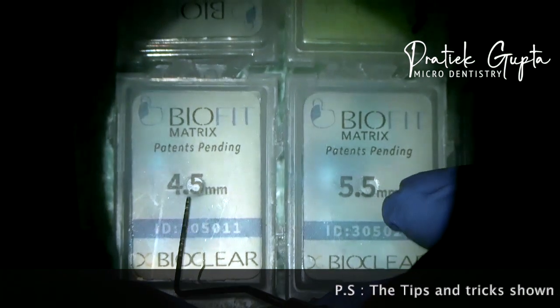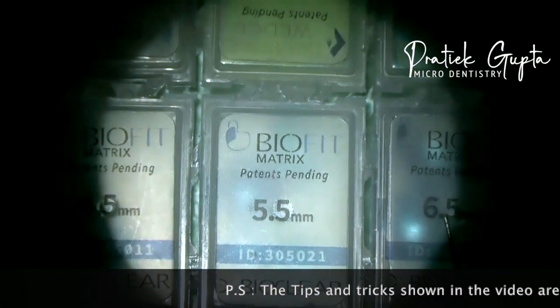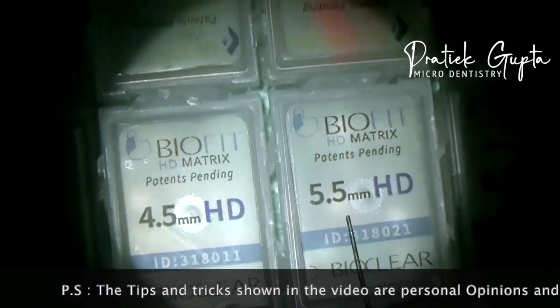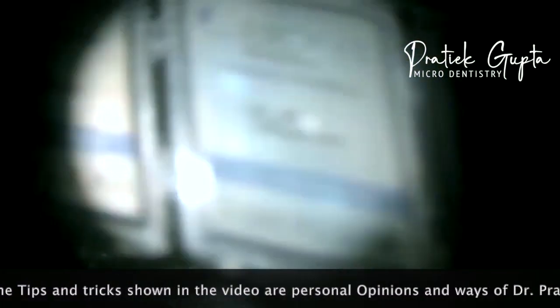BioClear comes in three different sizes: the 4.5, the 5.5, and the 6.5. Similarly, they come in the 4.5 HD, 5.5 HD, and the 6.5 HD.